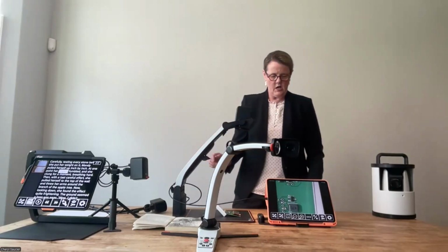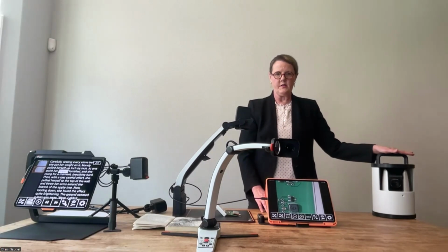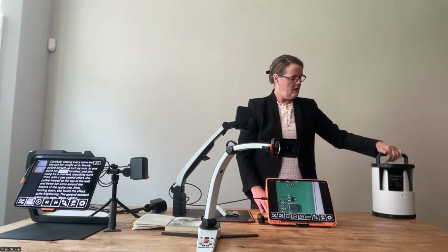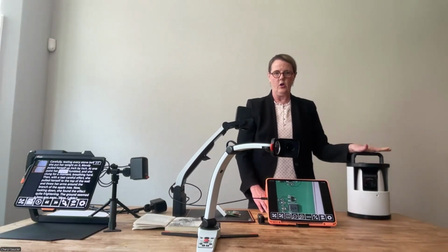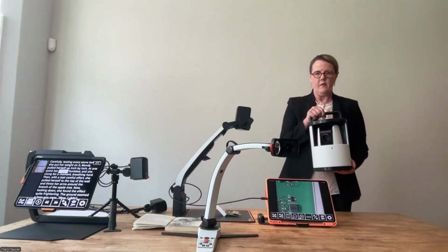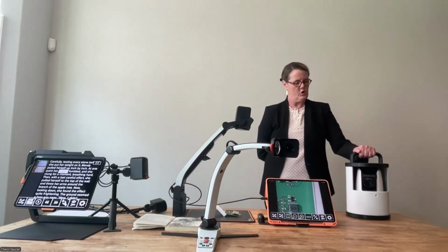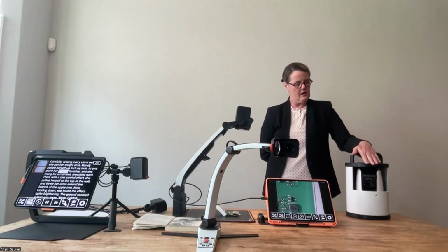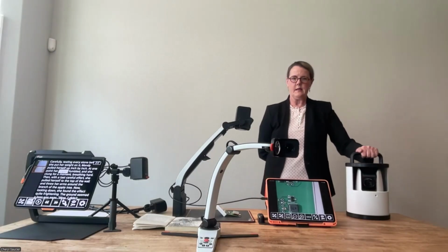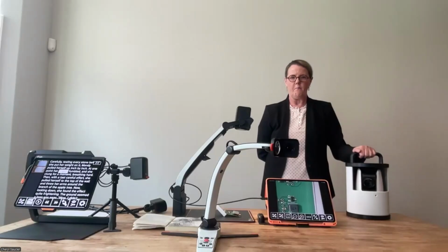The other ones I want to talk about are the wireless ones. So you saw the image in the presentation of the Magnilink AirGo. So this is what the AirGo looks like. It is something that can be placed in, say, a congregant environment. So what if you had a school for the blind and you have an assembly, you can put this AirGo at the back of that assembly room and have multiple students with their iPads connect to this device.